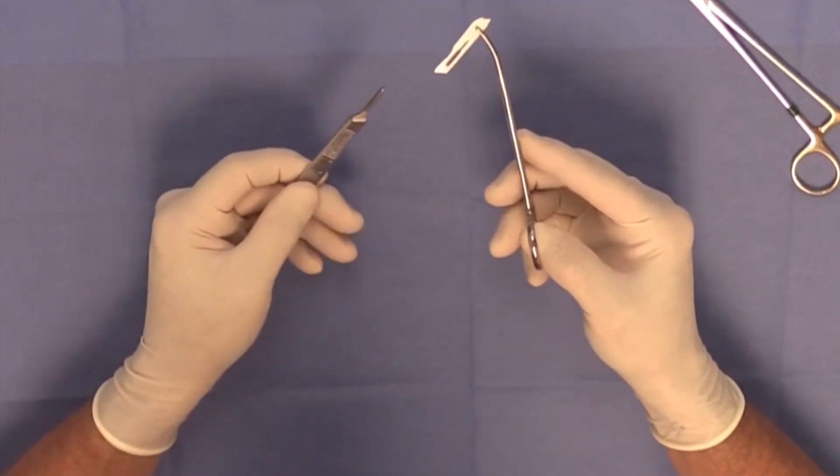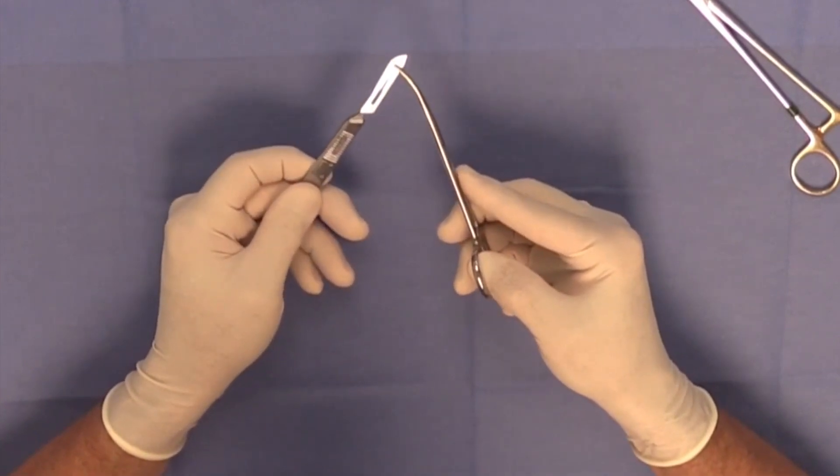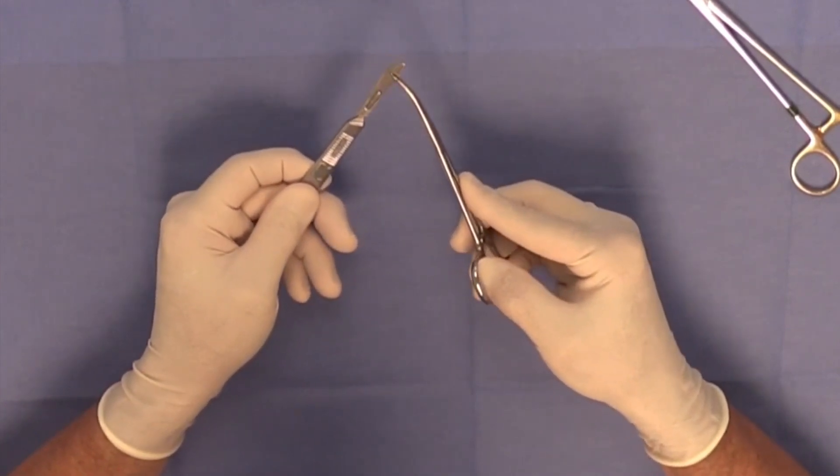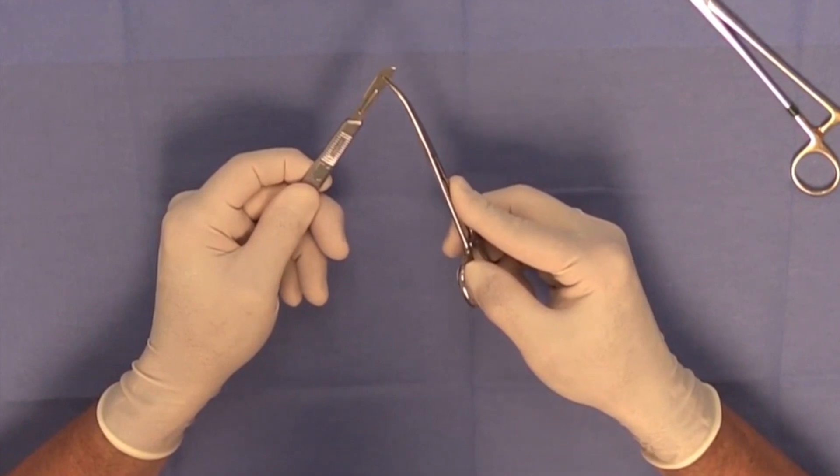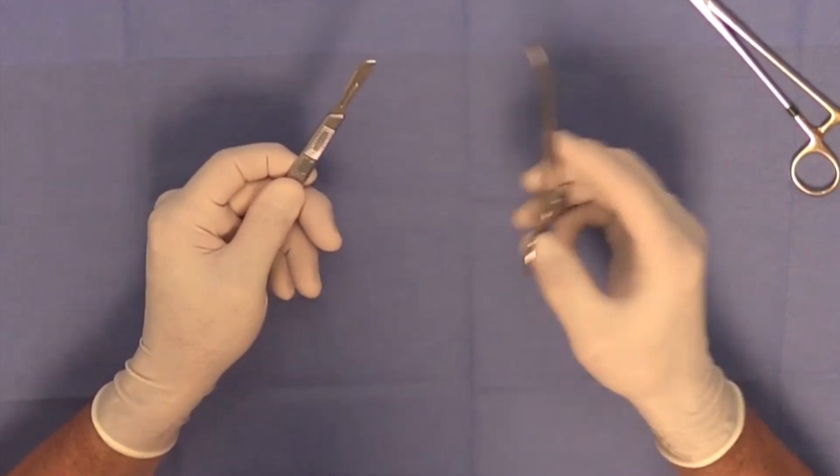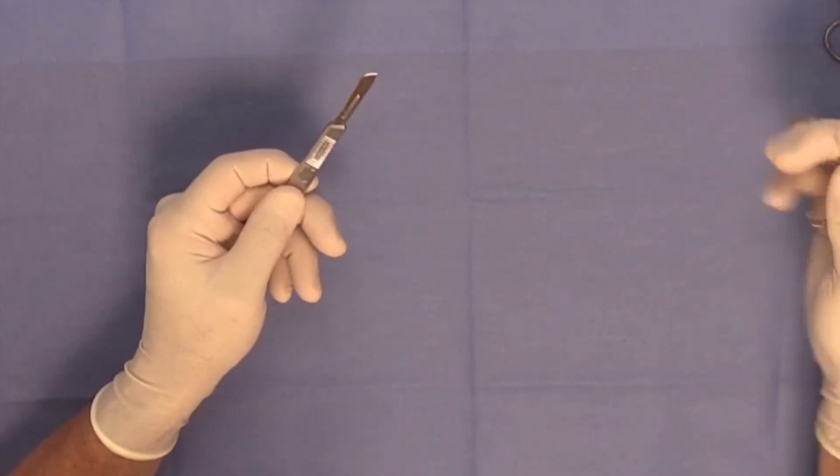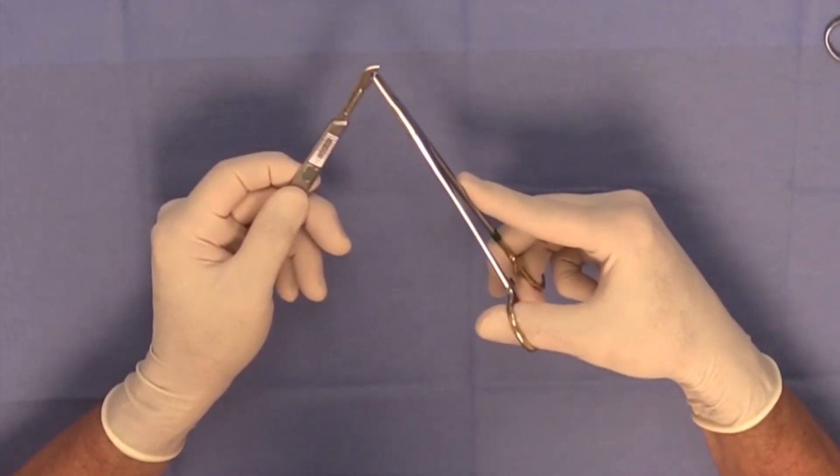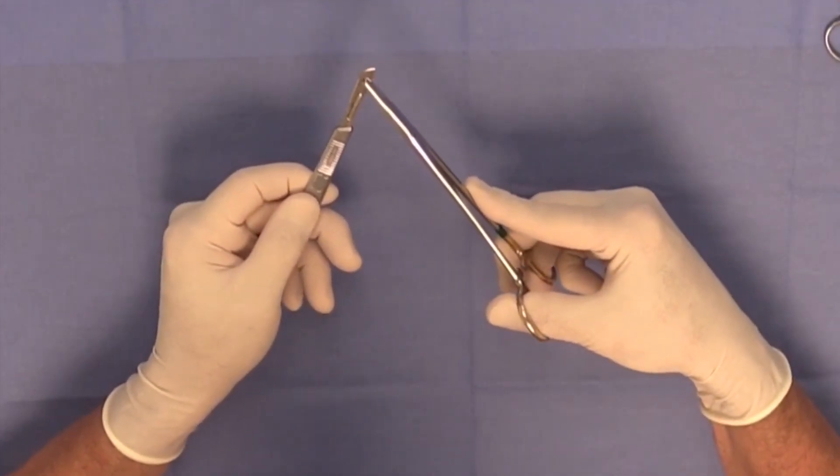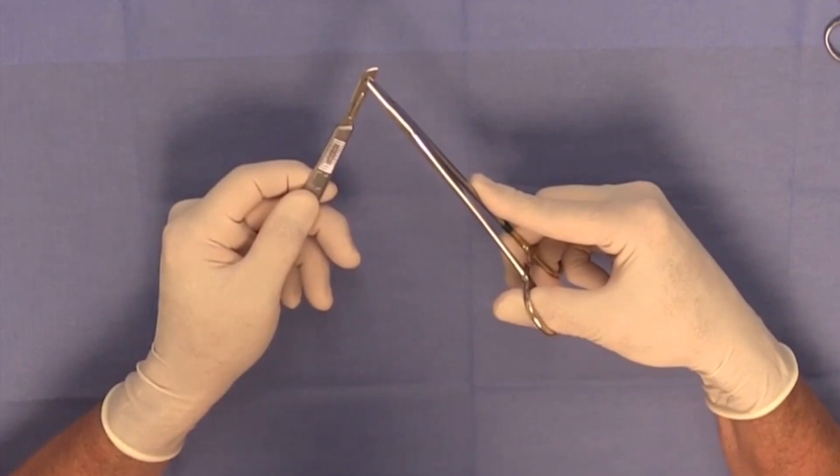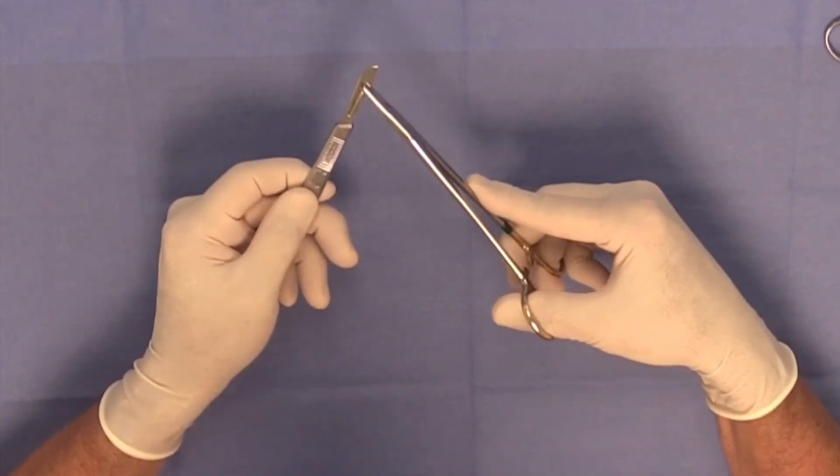So the scalpel blade should be properly applied in this manner, either using a curved or any type of Kelly forceps such as that, or you can do the same technique using your needle holders. But it behooves you to learn to apply the scalpel blade to the scalpel handle safely by using an instrument that's not your fingers.